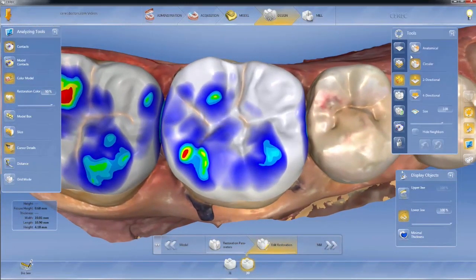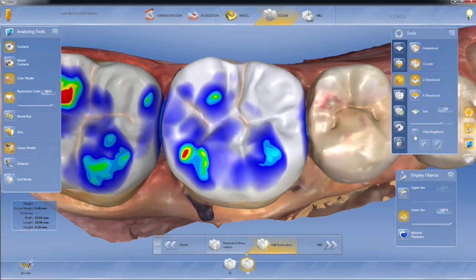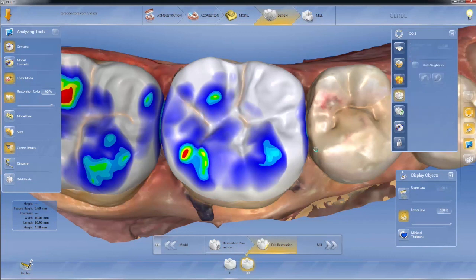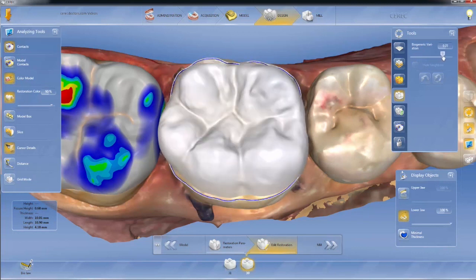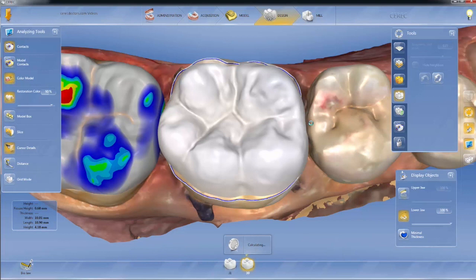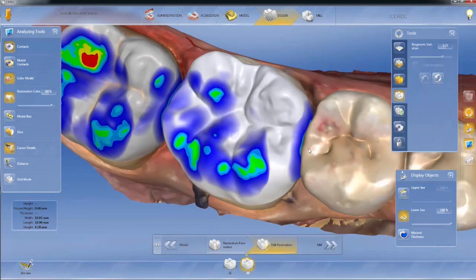We have our shape tool with our anatomical and circular options. The tools haven't changed from the past — we can adjust the size on the circular and use the hide neighbor feature. We have biogeneric variation, which changes the anatomy of the tooth. While the tool is the same, I found the results work much better than in previous versions. We have the ability to change the anatomy so we're not necessarily copying the adjacent teeth, but can change it to whatever size or shape we want.